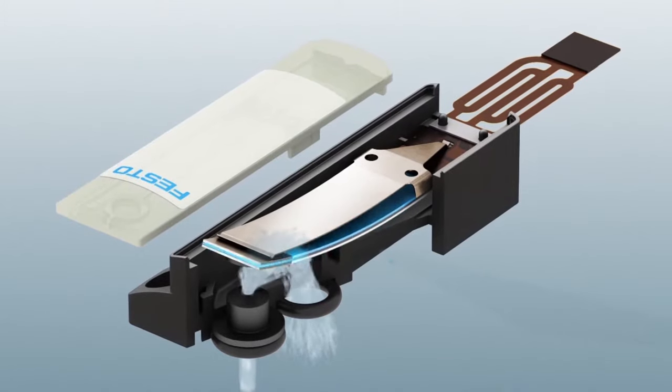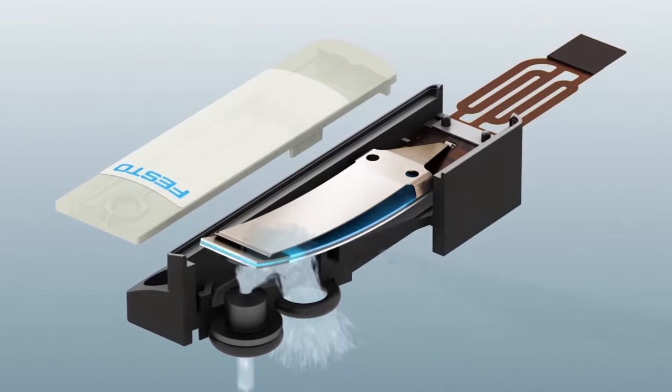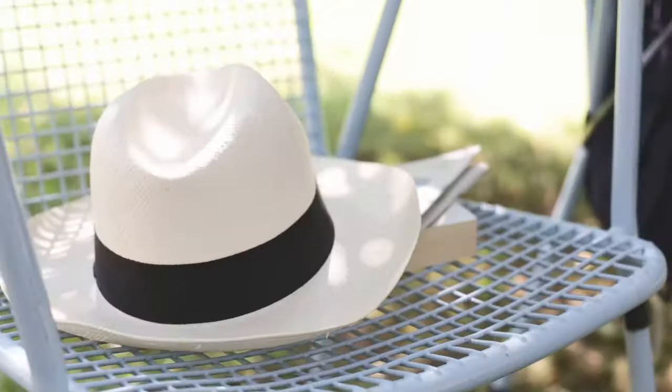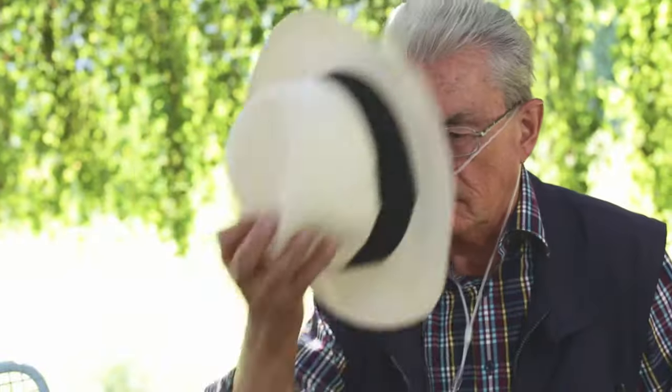Two two-way proportional valves control the flow rate, for example, in mobile oxygen therapy devices, thus ensuring precise oxygen supply and dosing during inhalation.